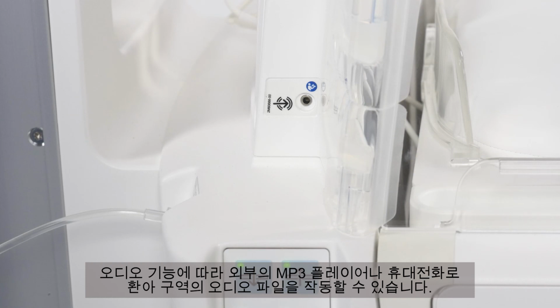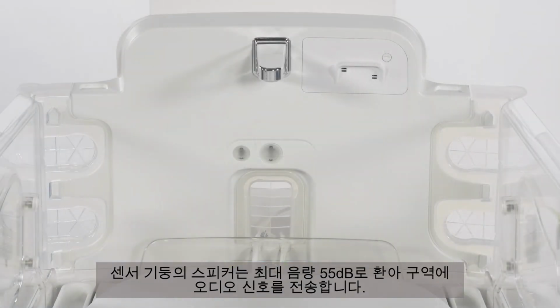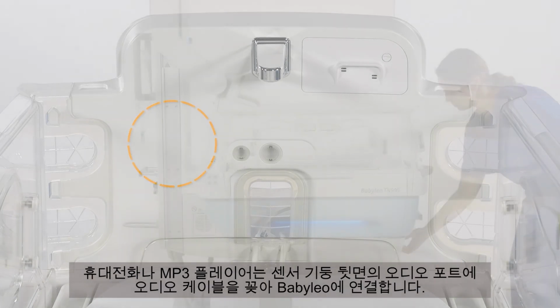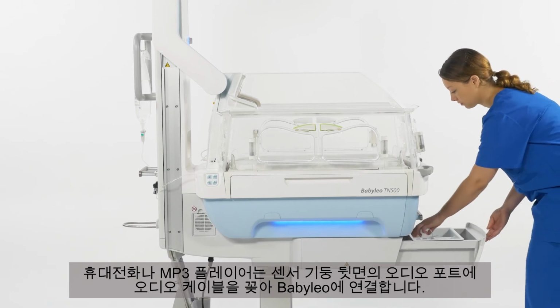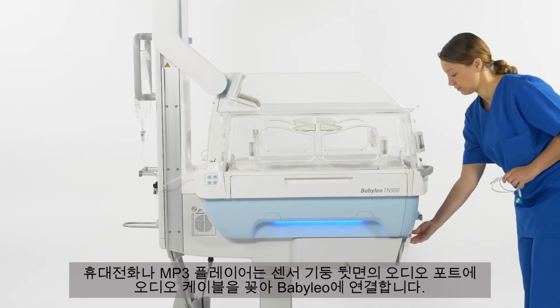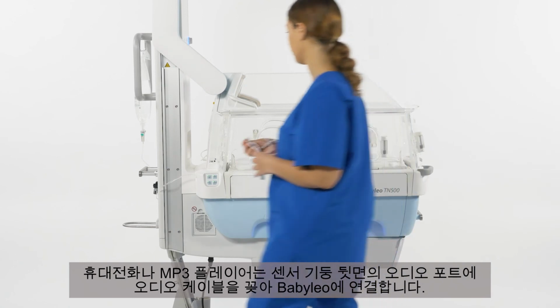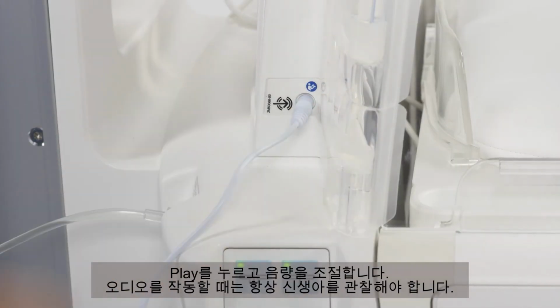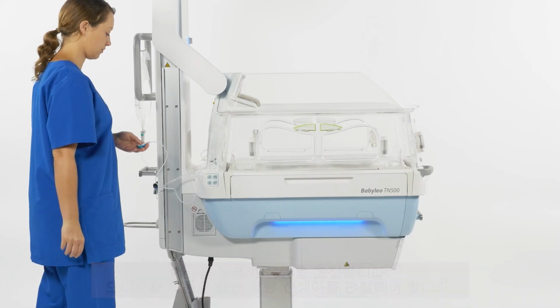The audio feature allows you to play audio files in the patient compartment from an external MP3 player or a cellular phone. A loudspeaker in the sensor wall transmits audio signals with a maximum volume of 55 decibels into the patient compartment, regardless of the set volume on the cellular phone or MP3 player. Use the audio cable to connect the MP3 or cellular phone to Babyleo by inserting the audio cable into the audio port on the rear of the sensor wall. Press play and adjust the volume. Always observe the infant while the audio is played.